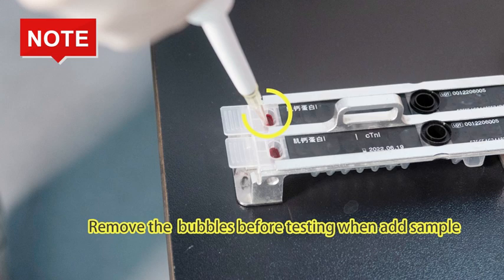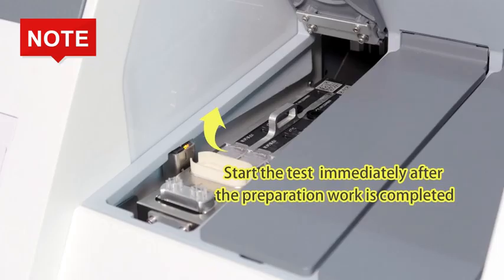Second, start the test immediately after preparation work is complete. The blood cell precipitation and evaporation of the sample in the whole blood sample will affect the test result.